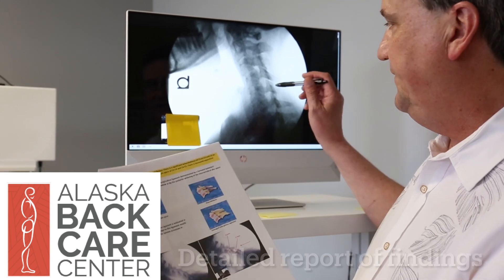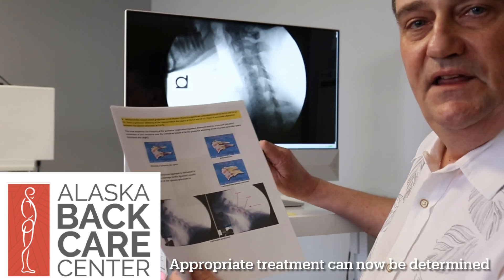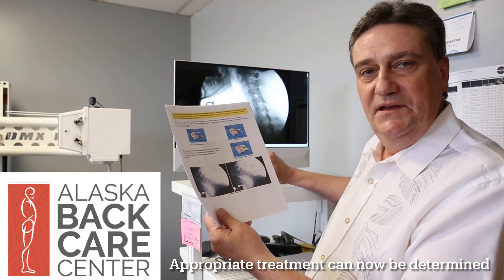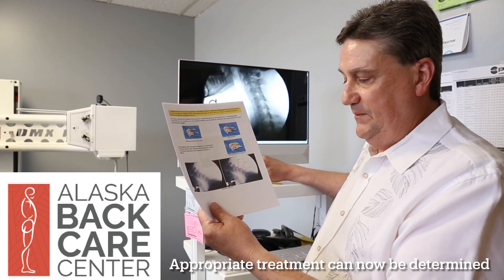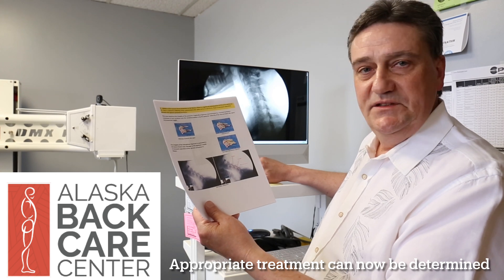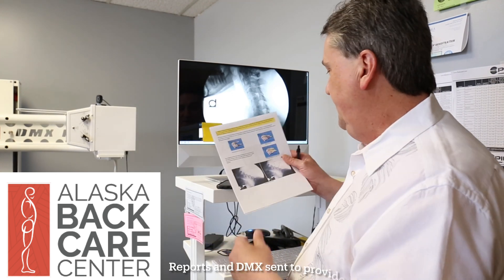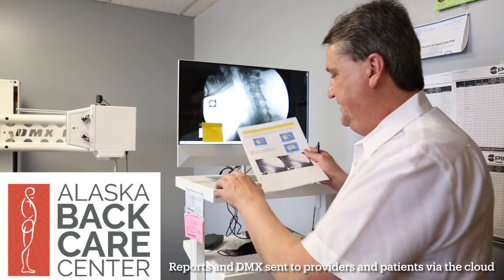Now that we've identified the lesion in her neck, doctors can appropriately direct the right treatment for her injury. Before, it was kind of hit and miss; now we know where the injury is and what's going on with this patient. We can also provide a detailed colored report like this to share with her physicians.